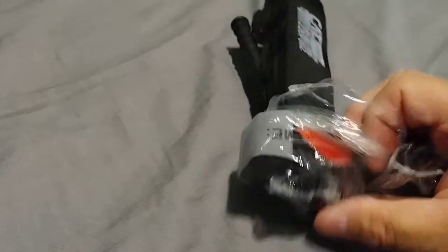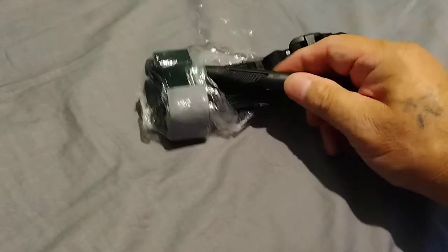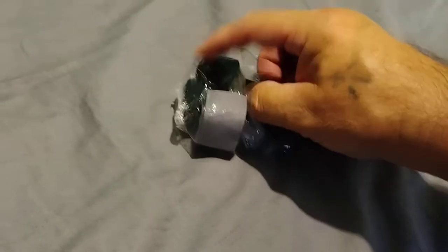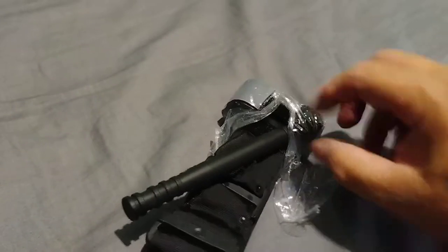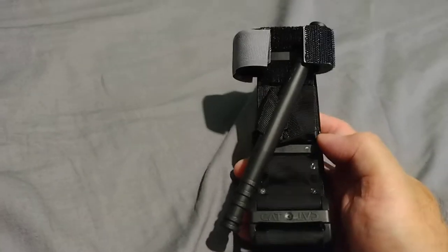The plastic is wrapped around the main locking head of the tourniquet right here, so that's why it's tricky. I can hear you people saying, 'Just put the phone down and tear it.' You're all witnessing a struggle here for me to get this off with one hand. Almost... success! There was some kind of glue on there making it stick even more.